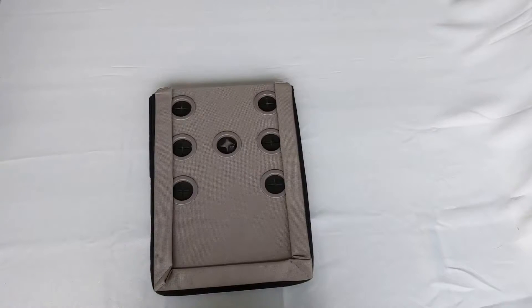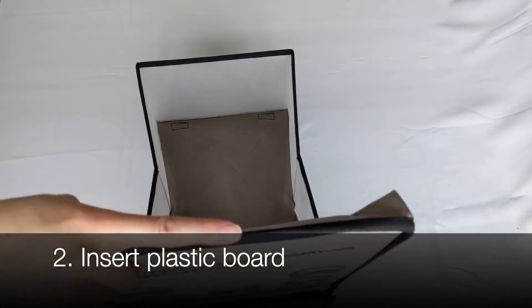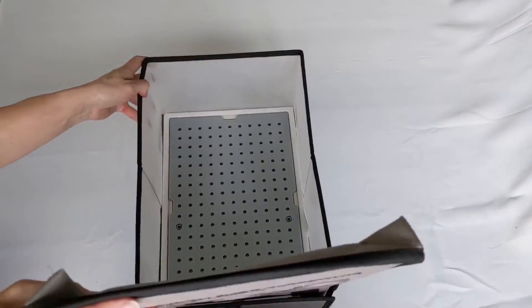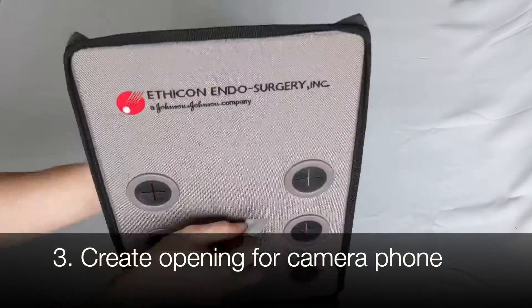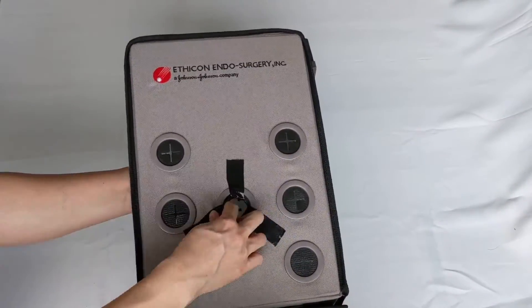Now you are ready to set up your box. First, unfold the box. Two, place the plastic board inside the box. Three, use the center circle to make an opening to accommodate the phone camera. You can either tape the flaps down or cut the flaps.